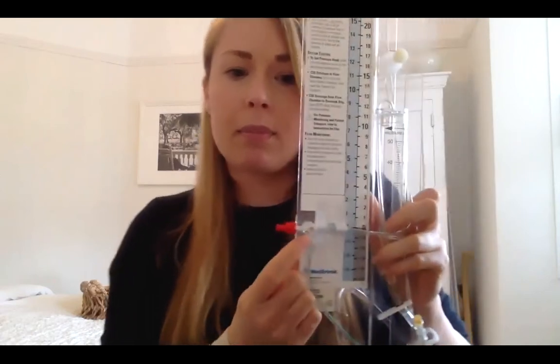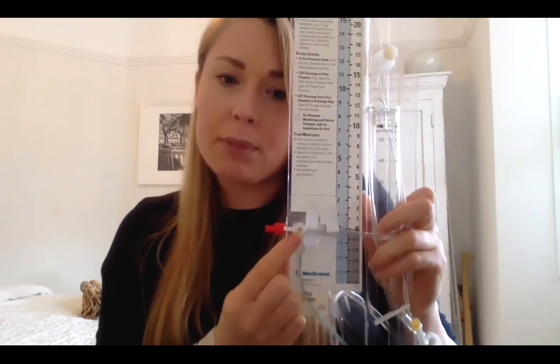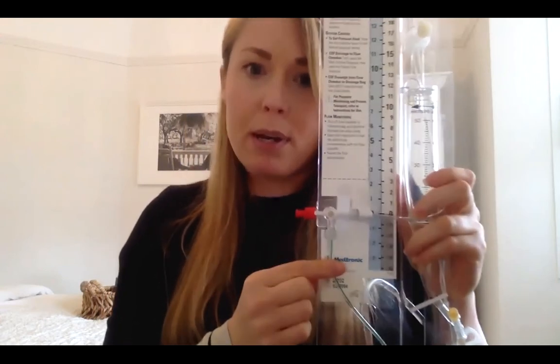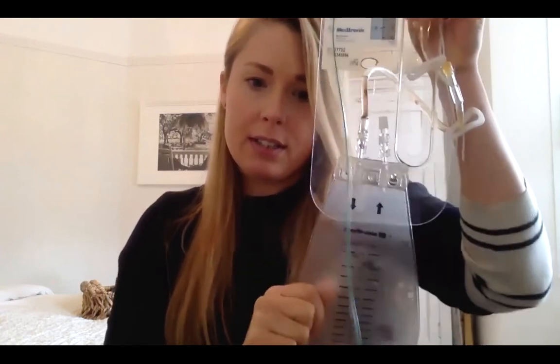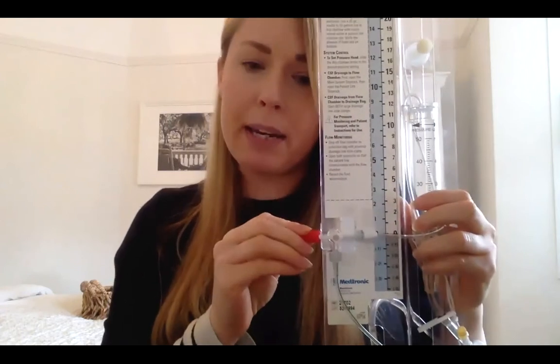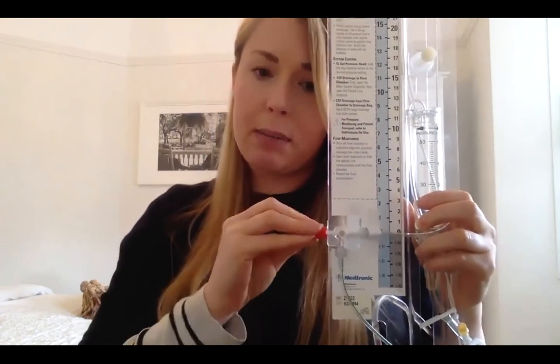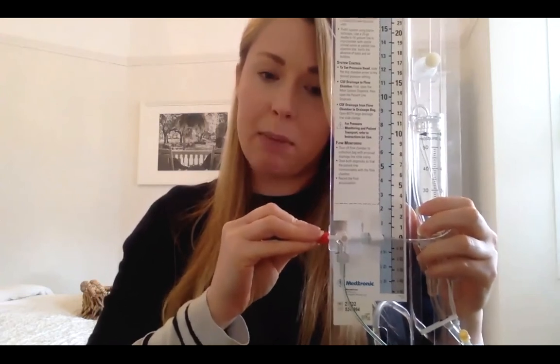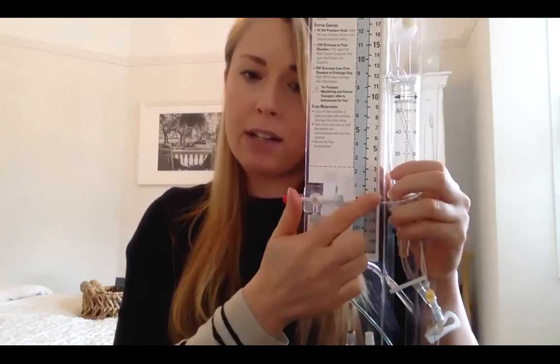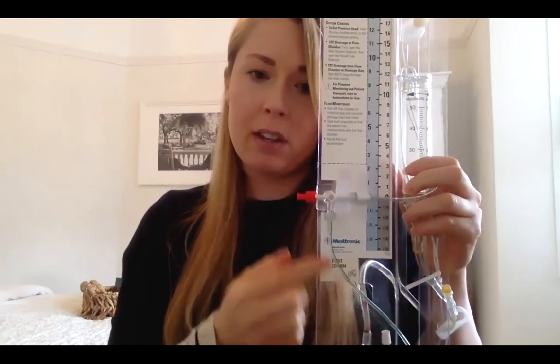So it's this tap here that's going to cause the most problems, and it really will cause a problem every hour when the nurse empties it into this chamber and if you have ICP on. If you're monitoring ICP, the ICP transducer will sit onto this tap here. So at the minute, this CSF comes in and goes into the chamber, so it's open to drain.